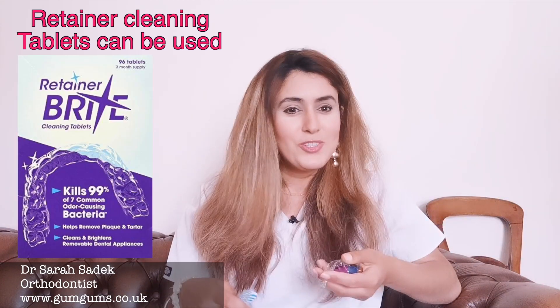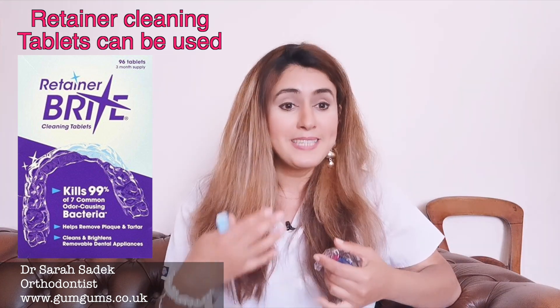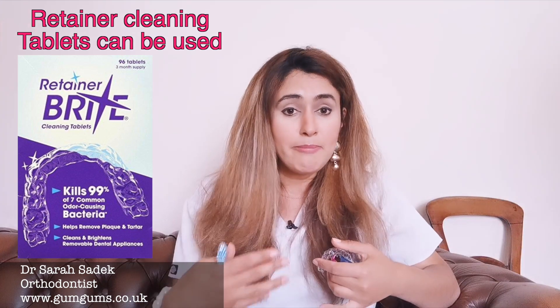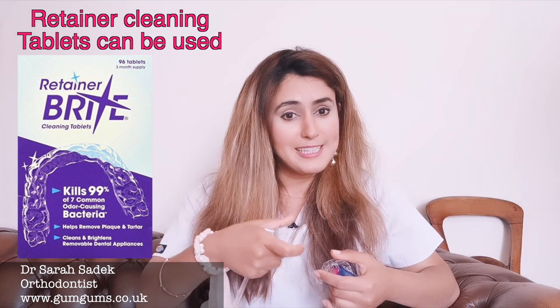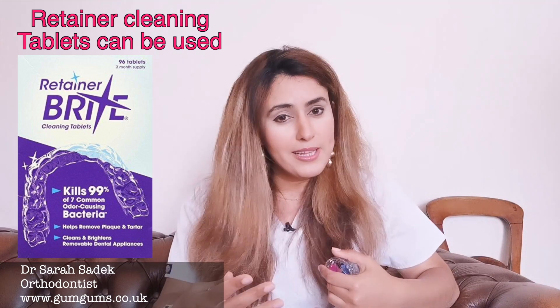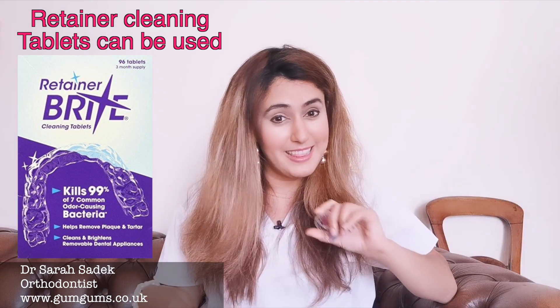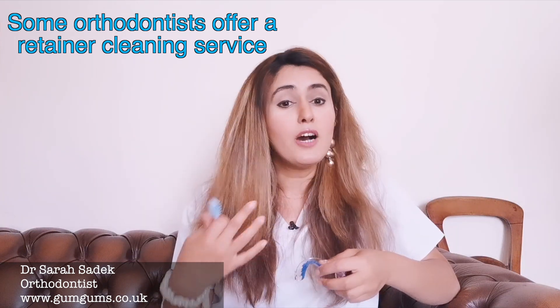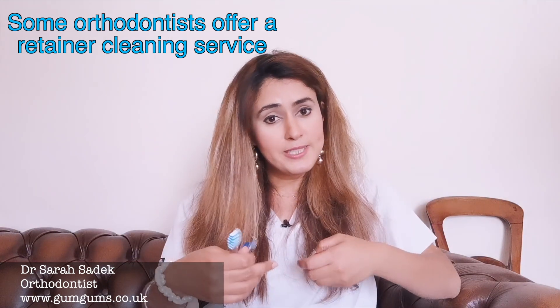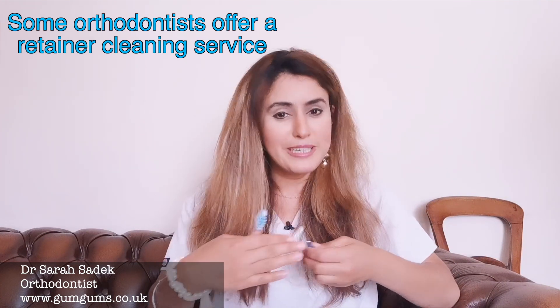The next thing you can do is ask your dentist about soaking your retainer in a denture or retainer cleaner. They'll usually recommend a tablet for soaking — you place the tablet into a cup of lukewarm water and follow the instructions for timing. Usually you soak your retainer for about 20 minutes. If you notice debris on your retainer that doesn't come off after soaking and brushing, you can take your retainers to your orthodontist, as they often have special solutions that can get rid of this build-up.